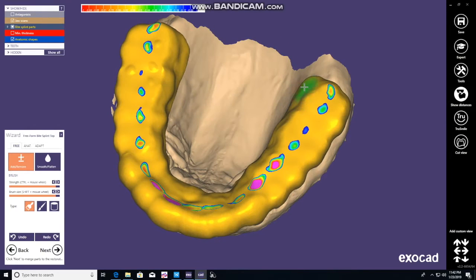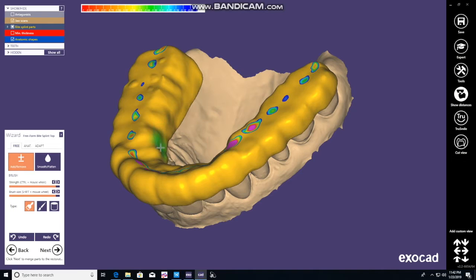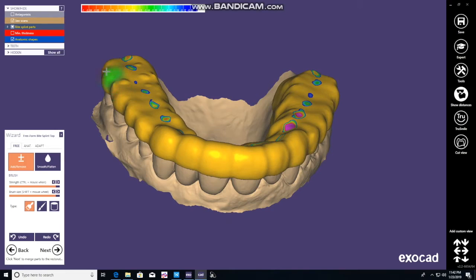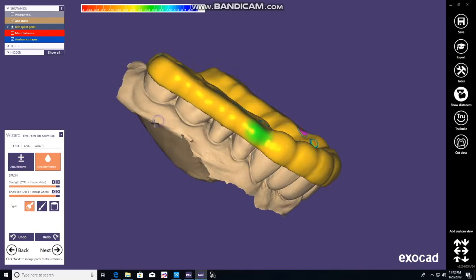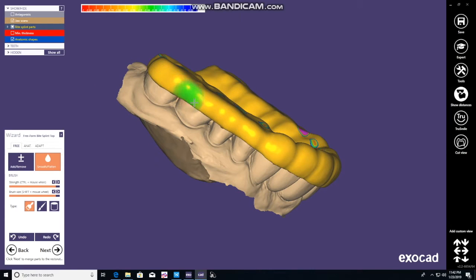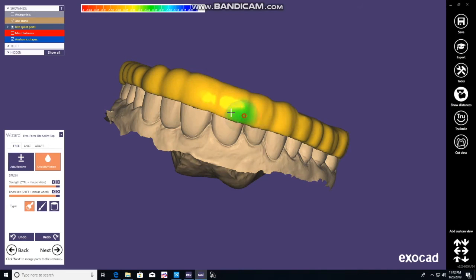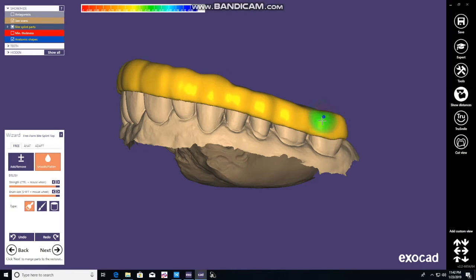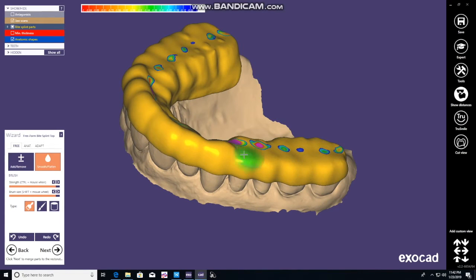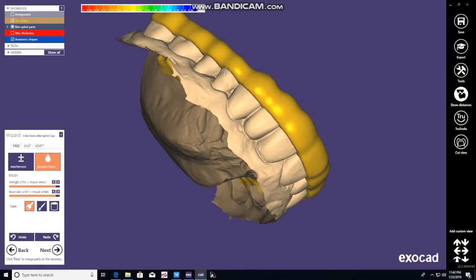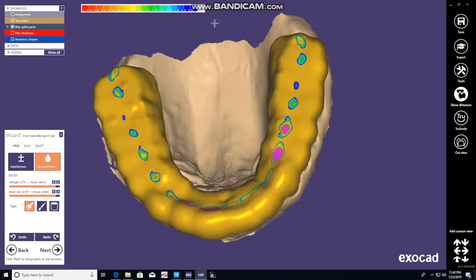Once we've done that, we're on the add and remove button — add and subtract. Now let's move to smooth and flatten. Both have great abilities. The smooth is just smoothing it if you don't click Shift. If you click Shift, you can actually flatten the surface out. You'll see I'll jump back and forth between the two until I get the shape that I like. Same thing on those incisal edge areas — just to be more comfortable for the patient.